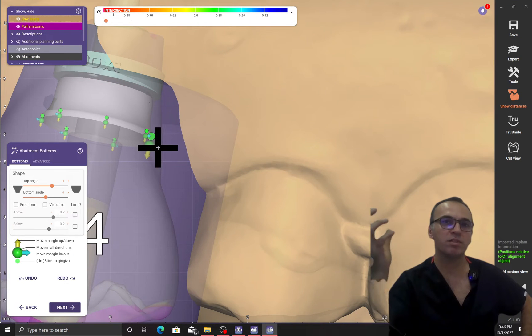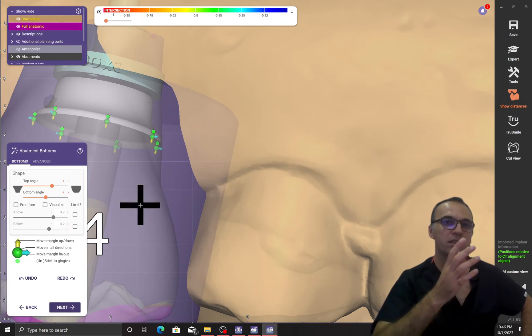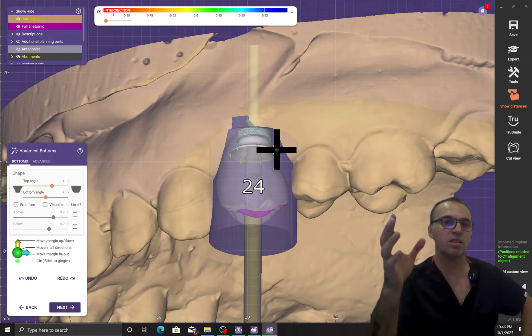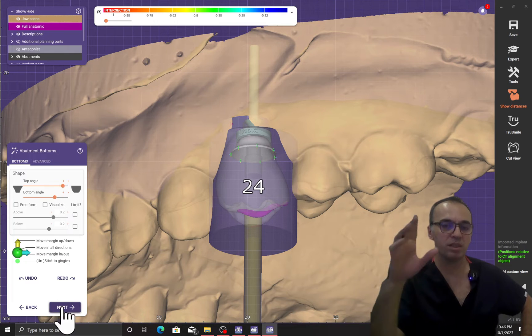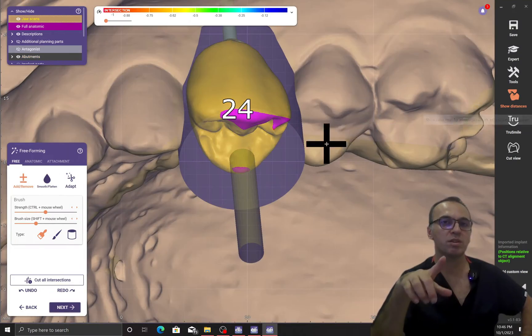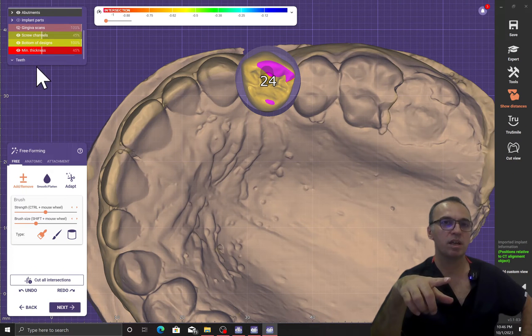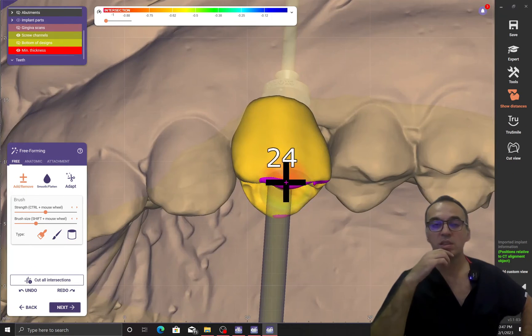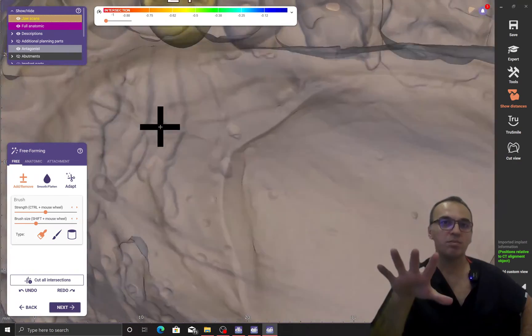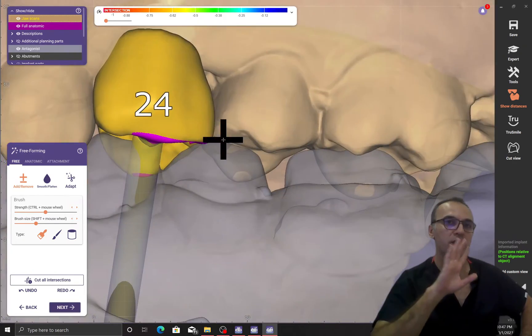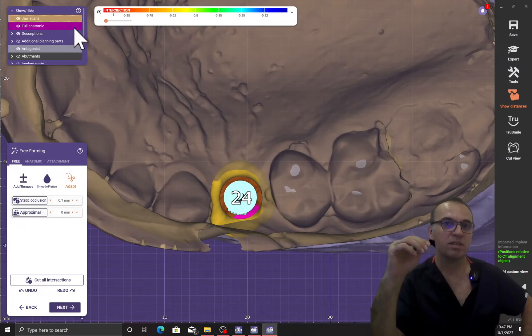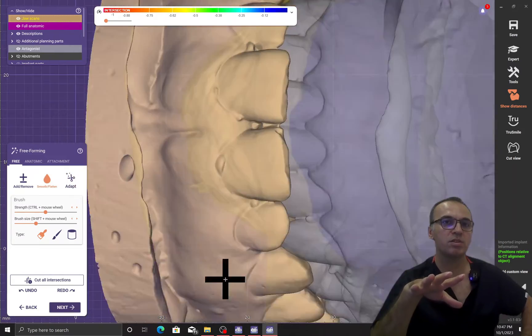We always know that surgeons can't place the implant exactly as planned — maybe a five-degree angle difference between your design and the actual placement time. That discrepancy is a complete mess and nothing is usable; immediate loading is ruined completely. So we use a symmetrical round design. Of course, this is not suitable for the final restoration because it has more tendency for screw loosening. I prefer to use two abutments: one for immediate loading and another for the final restoration. Because of that, here we are free to use a symmetrical abutment.